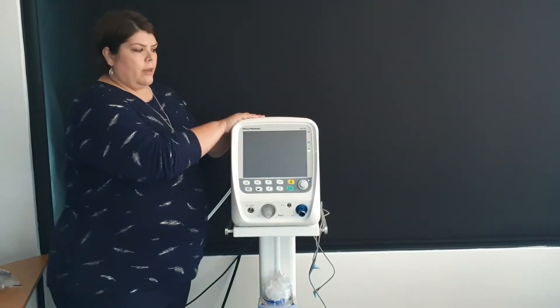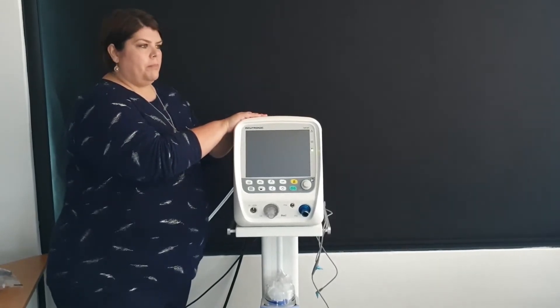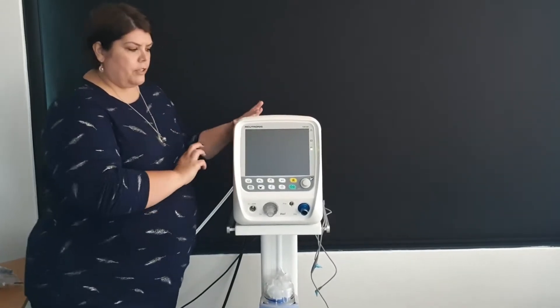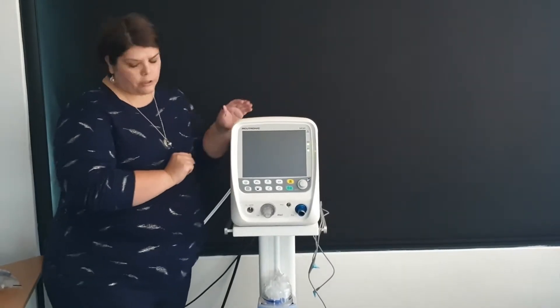For the purpose of setting up your equipment, we are basically going to show you how the circuit looks and why you use what you use, so that you are orientated towards your circuit.